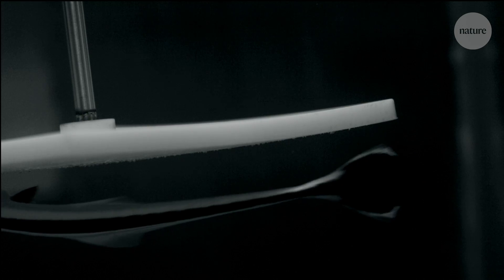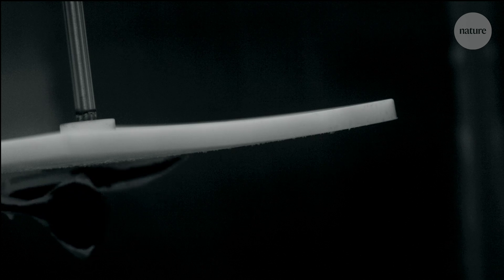The big sucker allows for suction, the comb-like structure forms smaller suctions, and then the little teeth interact with the tissue to really maximize the physical interaction and friction between that part of the organ and the substrate or tissue.